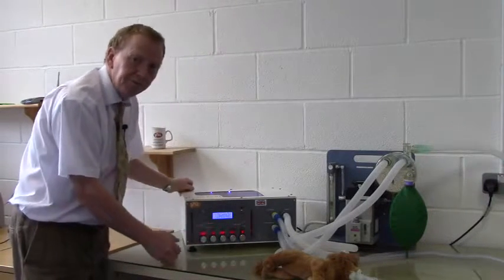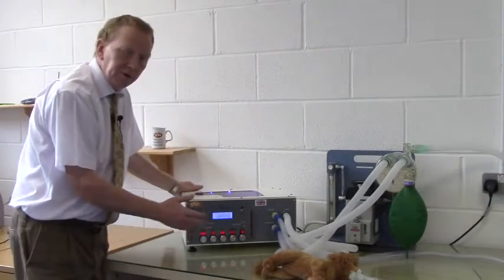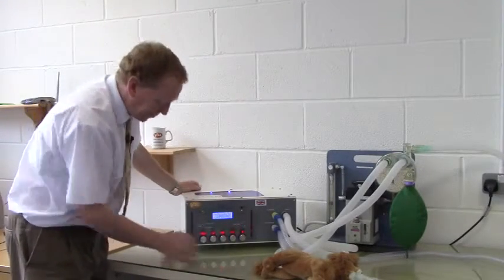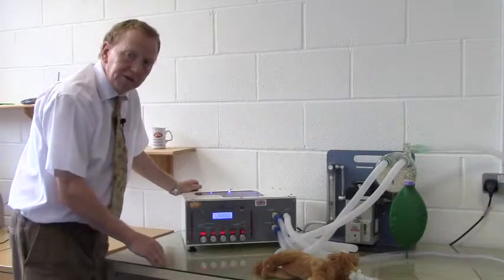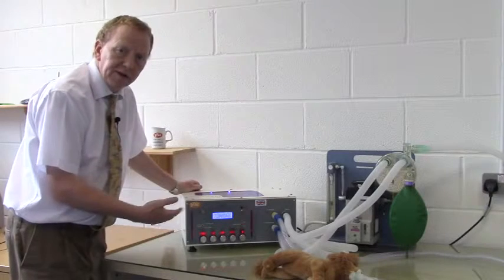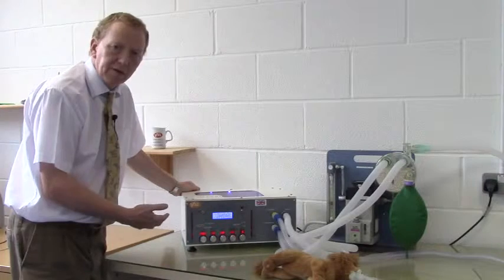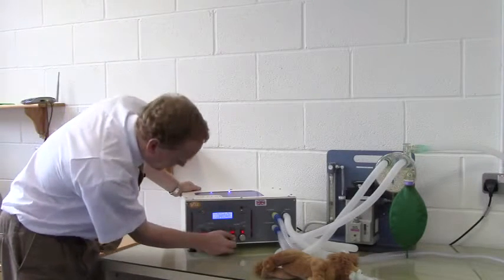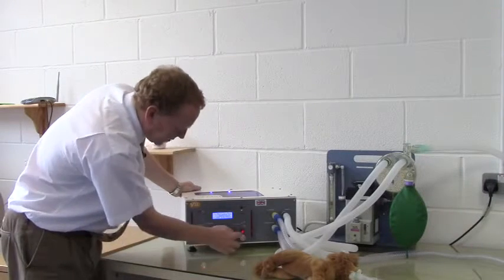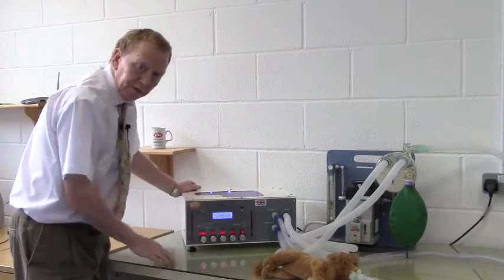The expiratory time, we want an IE ratio initially of greater than 1 to 2, so I would set it between 2 and 3, and at the moment it's set to 2.8, which is fine. Our maximum airway pressure, as described before, is a safety circuit limit, and we'll leave this at roughly 5 to 10 centimeters above our anticipated maximum, which will probably be about 15. So we'll set this at 25. And the assist mode threshold is not important in this setting, as the assist mode will be off.